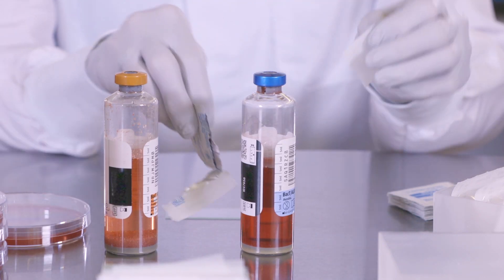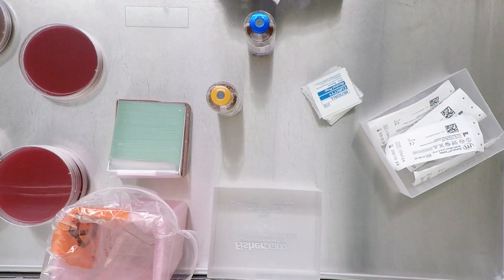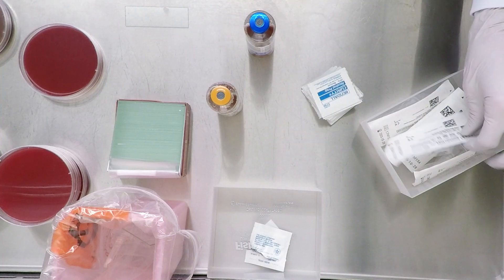Next, disinfect the bottle septum per your facility procedure. Now, you are ready to begin the dispensing procedure.